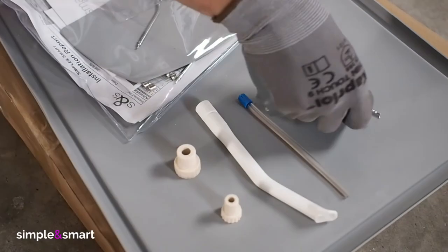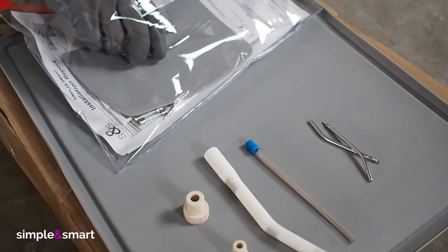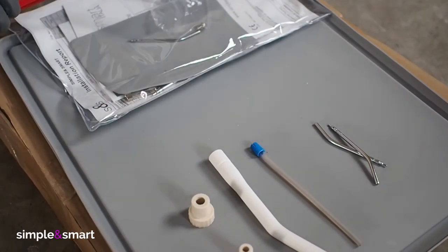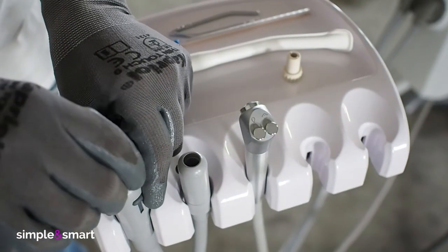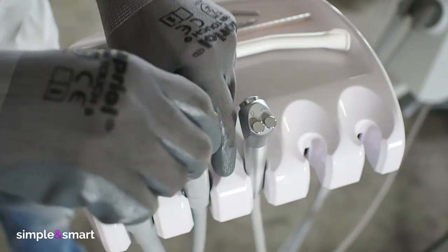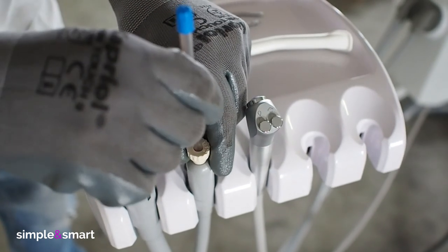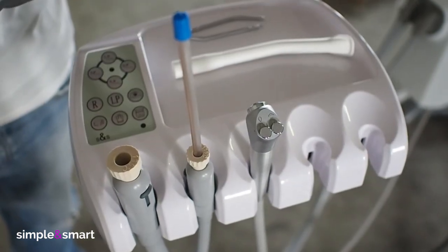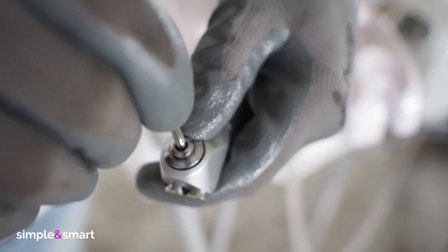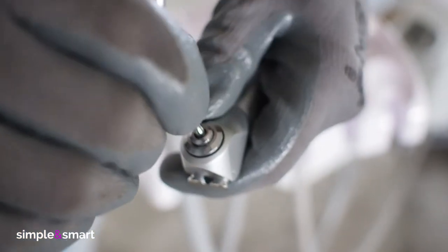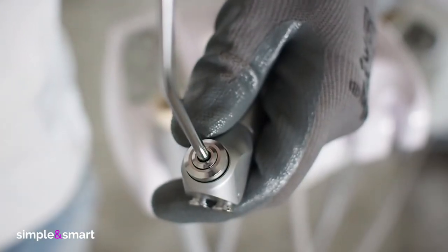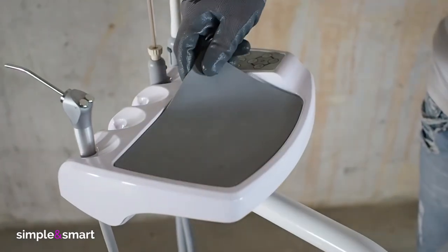Insert adapters for suction and the metal tips of the syringes. All the silicon's in their position and the game is done.